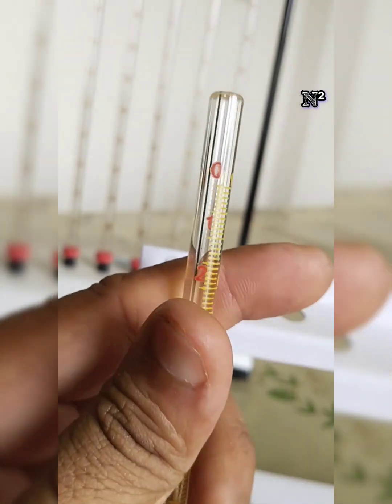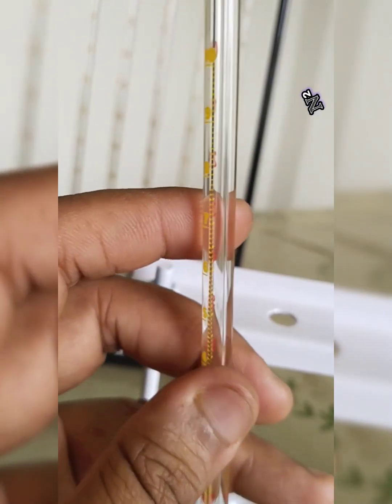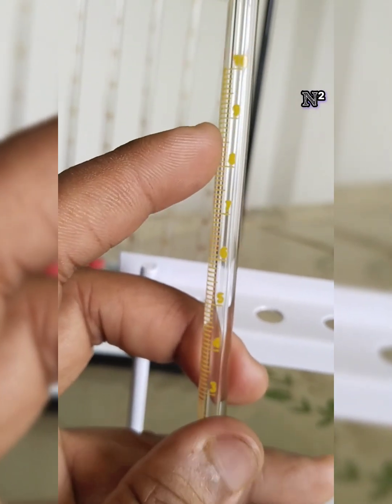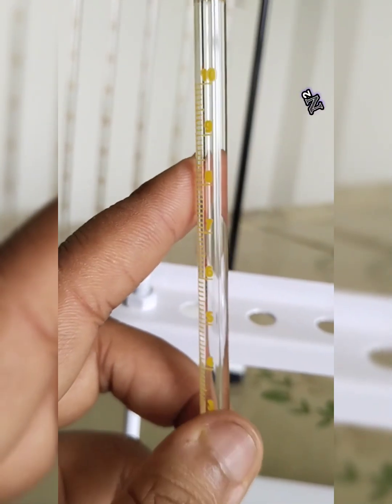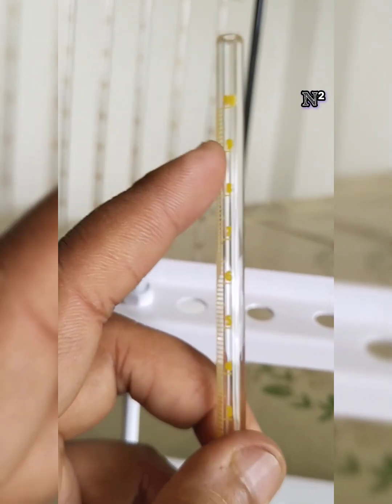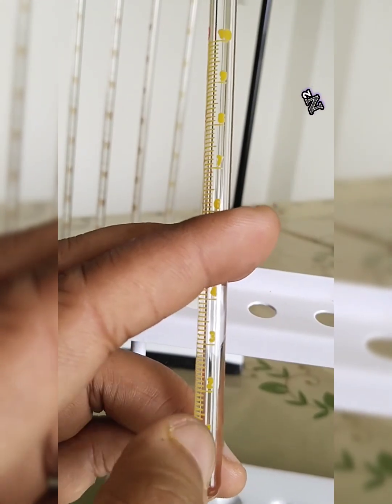The same tube can be used during the same period for doing the packed cell volume. During this time, the blood will be gravitating down, and the packed cell volume is defined as the cellular components in the blood which get packed together during a certain interval of time. If you measure from bottom to up, this time you use the yellow marking: 0, 1, 2, 3.